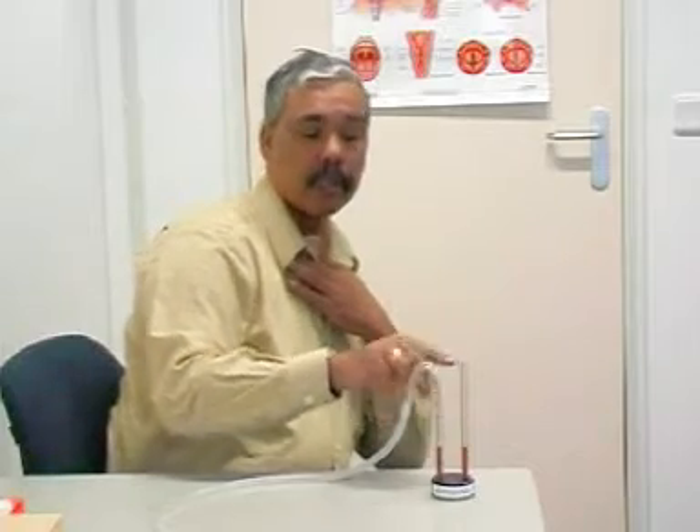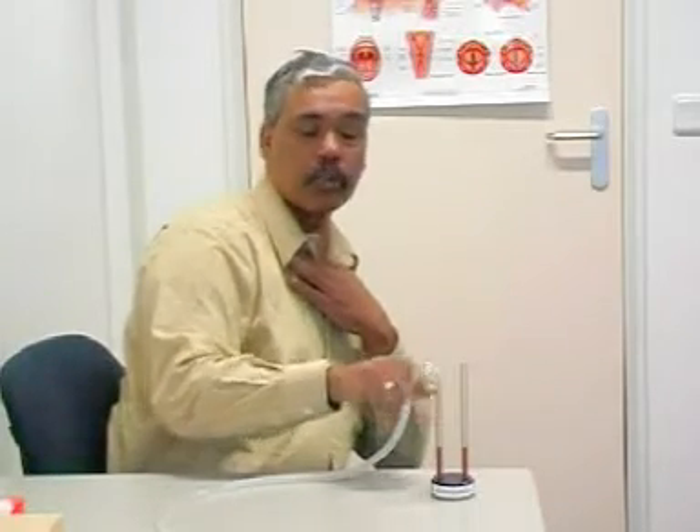I've been allowed to take this manometer home for two weeks to practice the new technique for smelling. I'll demonstrate this in a minute. The fluid should rise here and start to fluctuate. If the fluid rises on this side, then you've managed the technique well.